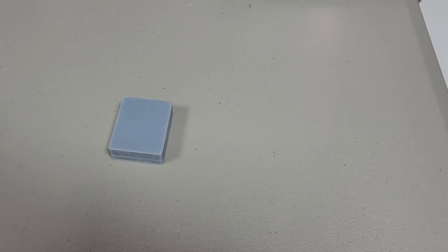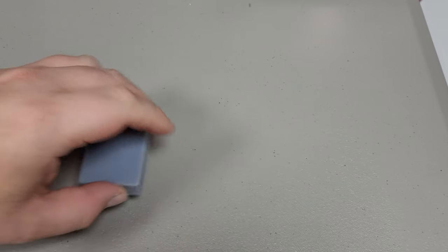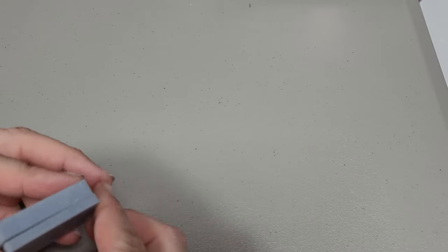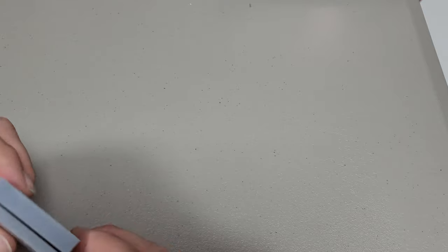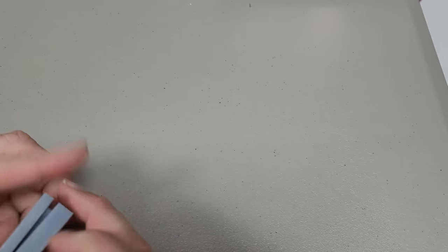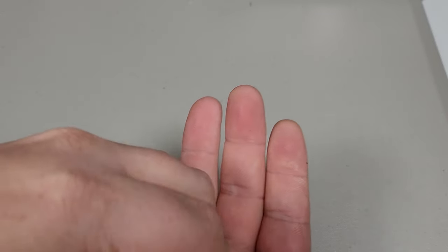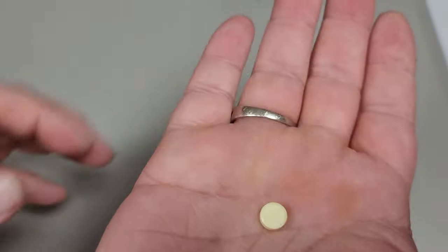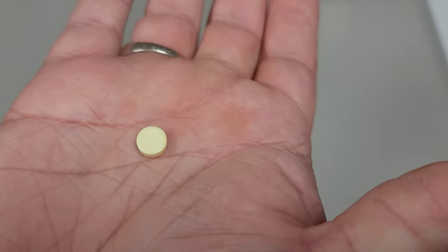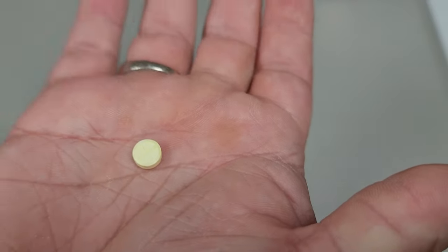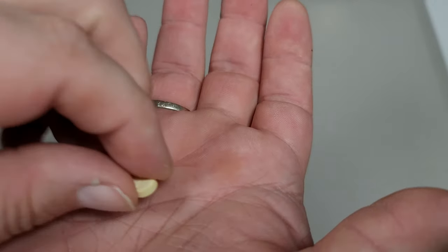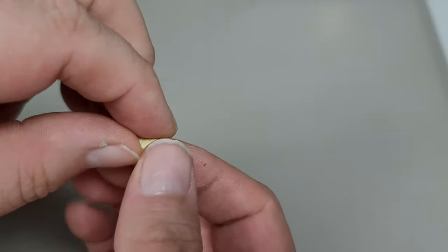Hey guys, I wanted to share a little thing I've been fiddling with the last couple days. I have a particular medication I take that I need to split in half.